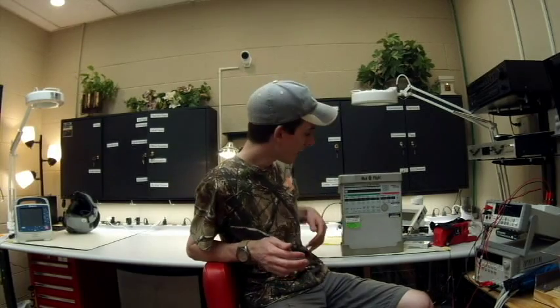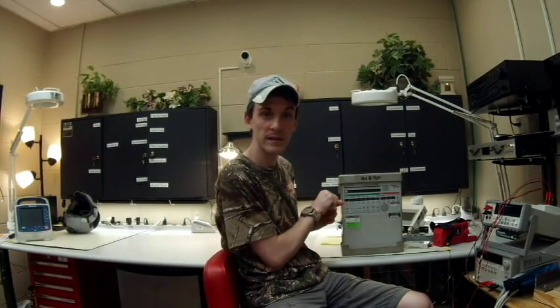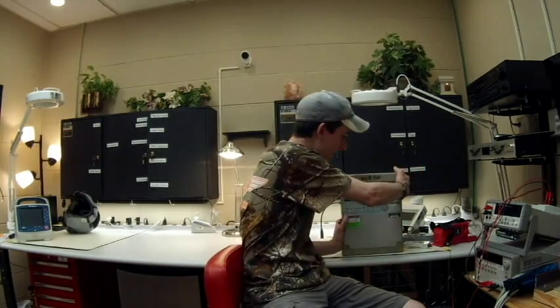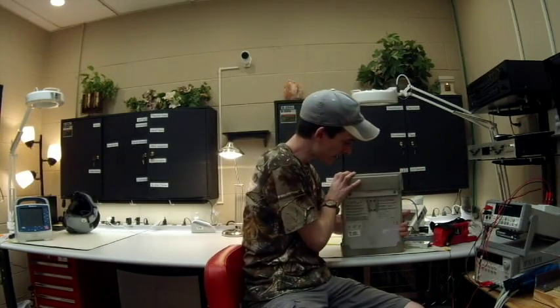If the connector gets frayed from over-stressing, and the wires inside — black, red, green, and white — cross a certain way, it'll start to heat up. That heating process will melt the connector together with the power-in plug, and you have to replace both the connector and the power output from the AC adapter. It's a very good, productive unit and we don't put that many hours on it.